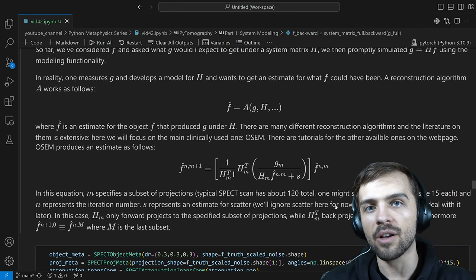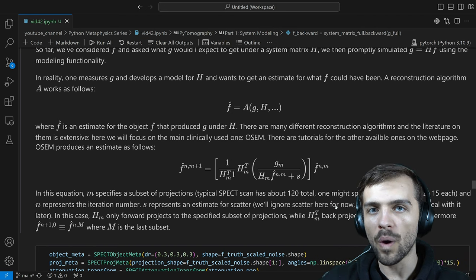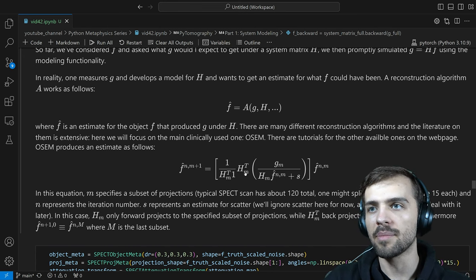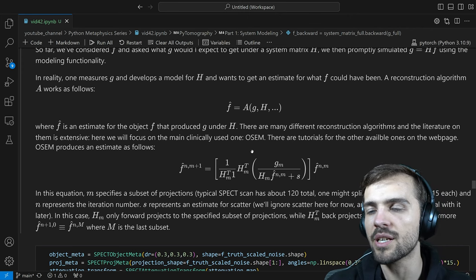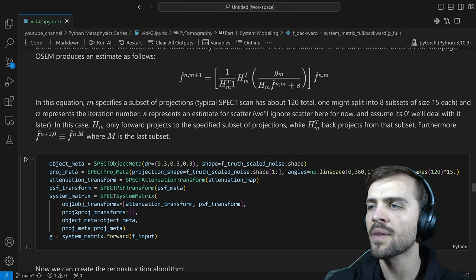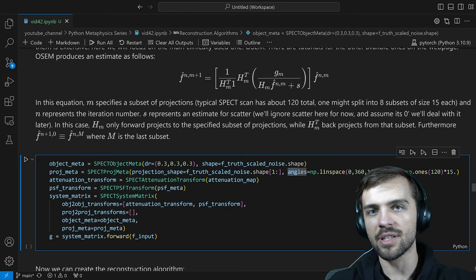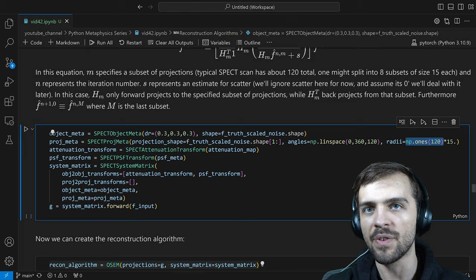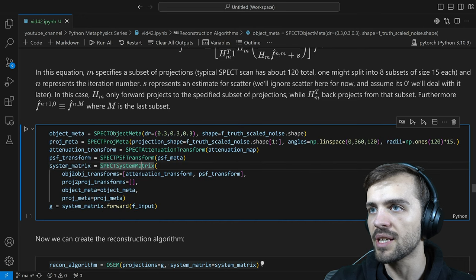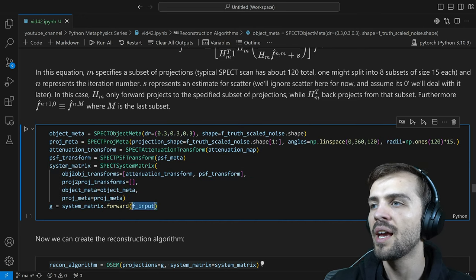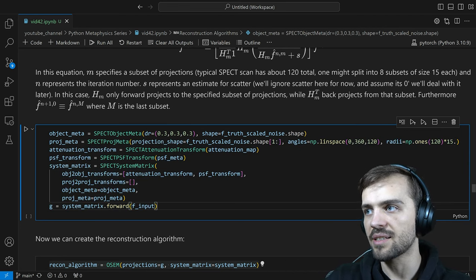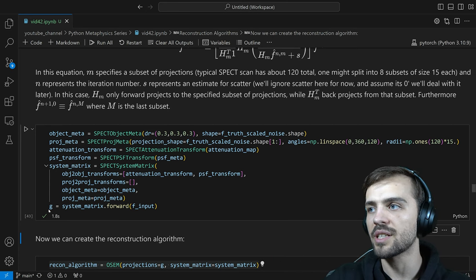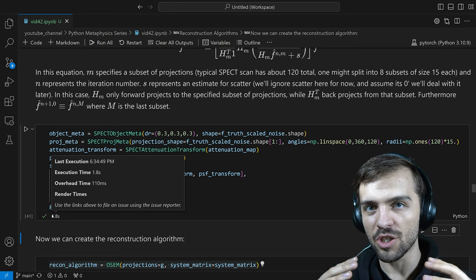We're going to use OSEM to reconstruct some data G we simulated. This is basically a summary of everything we've done before, only now instead of 3 angles at 0, 20, and 40 degrees, we'll use 120 different angles between 0 and 360 degrees, each radius at 15 centimeters. We build the attenuation transform and PSF transform, the full system matrix, and model all 120 projections. You can see it runs very fast — doing attenuation correction, PSF, and projection for all 120 angles in about 1.8 seconds. This is the reason the GPU implementation is so important.